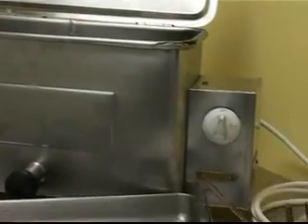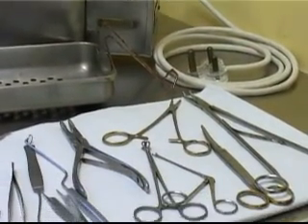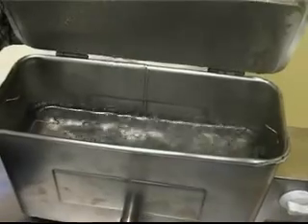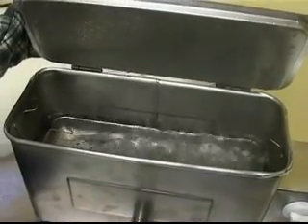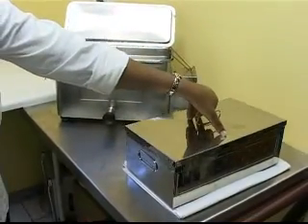Instrument sterilizers are used for disinfecting metal instruments and suitable plastic and glass materials, making them free of germs. Disinfection in boiling water removes microorganisms or reduces them to levels that are no longer harmful. There are different ways to sterilize instruments.